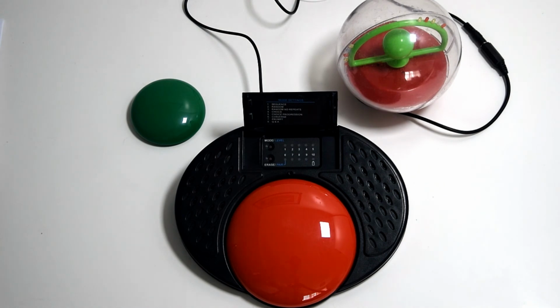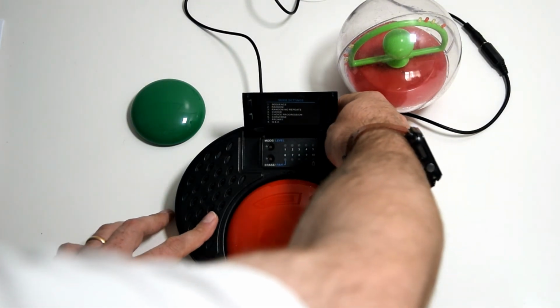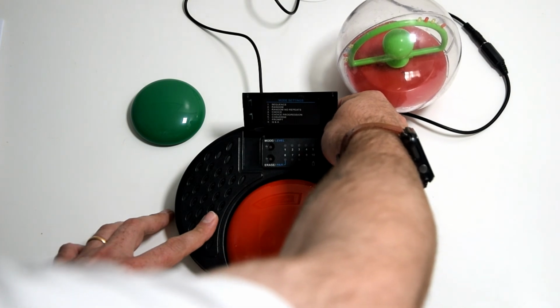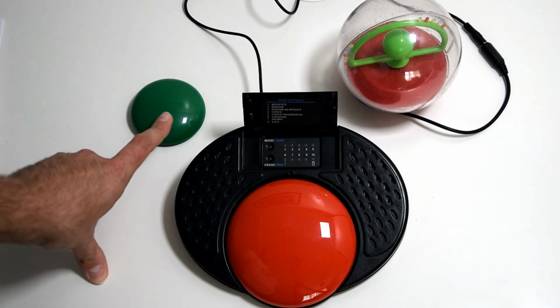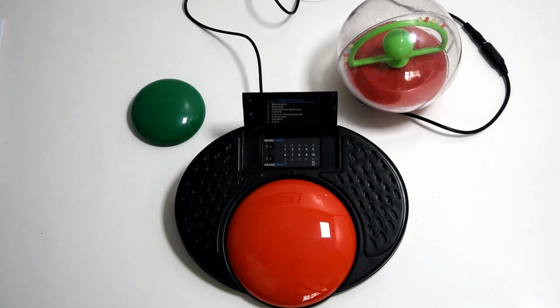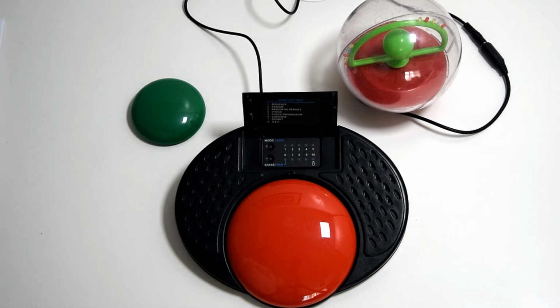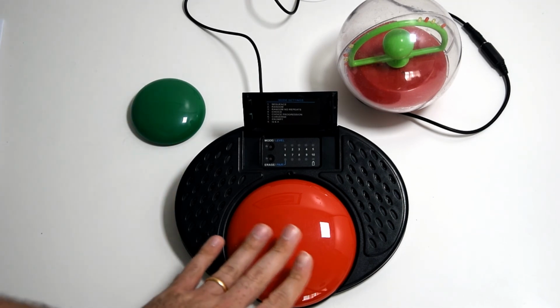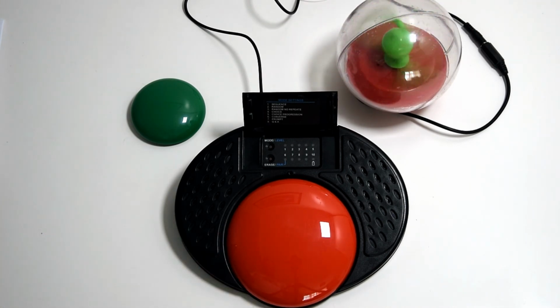And once you've done that, as you noticed, I pressed the record button for the answers there. What we should get is a toy output when the person is answering the question. So we'll come out of record mode, and in question and answer mode, the external switch is the question. What colour is the sky? And you can keep asking the question. What colour is the sky? Until you get the answer. So you then press the main button for the answer, Blue. and you get the output.